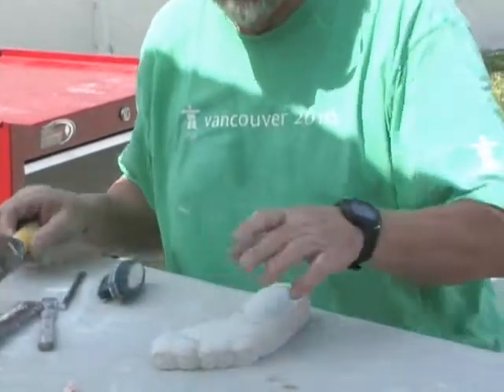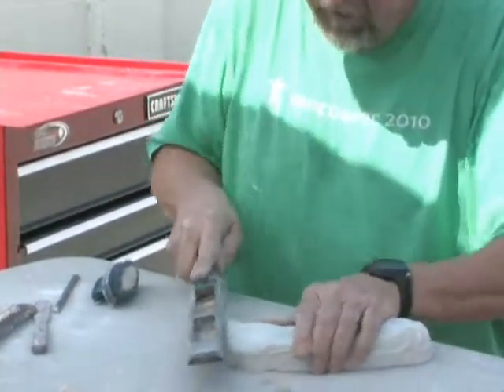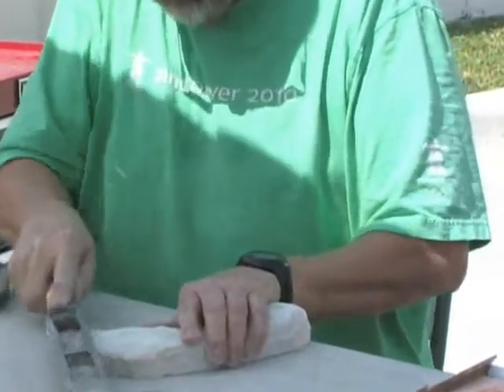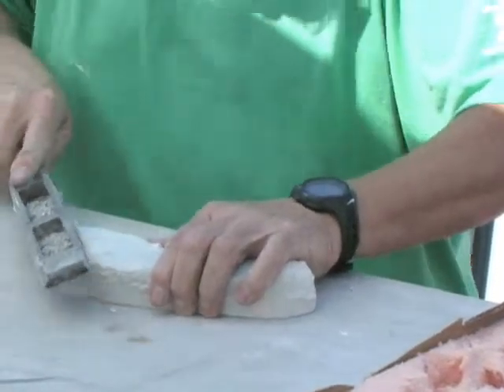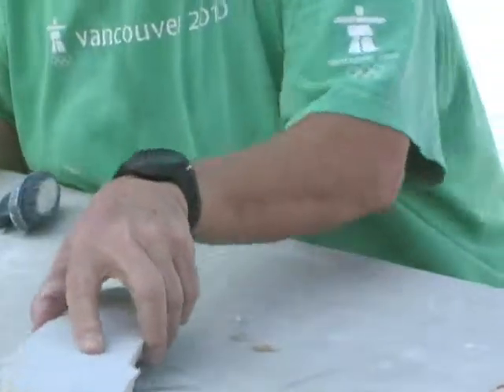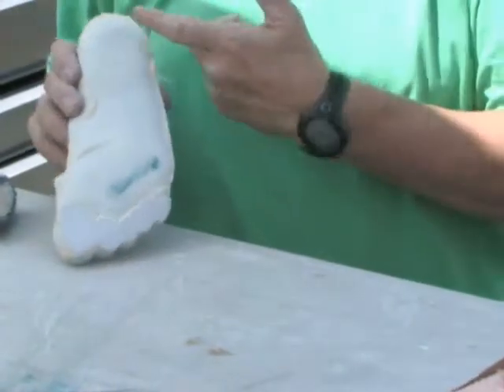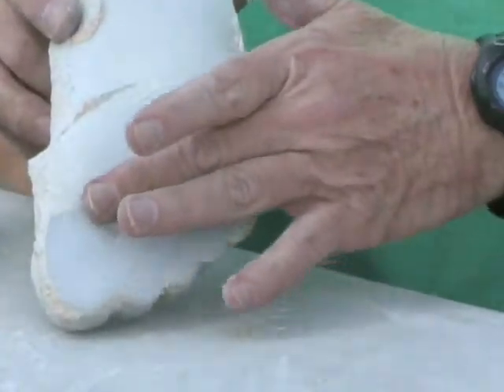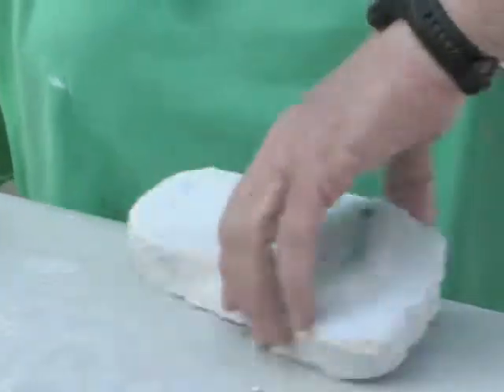That's not right — I've got to get that toe out of there. I just take the file and get the toes down out of my way. The toes mean nothing to me — of course they do to you. Now one more time: I turn it over and closer — I have contact at heel, fifth, and sort of across the second to five. That's not quite the way I want it.